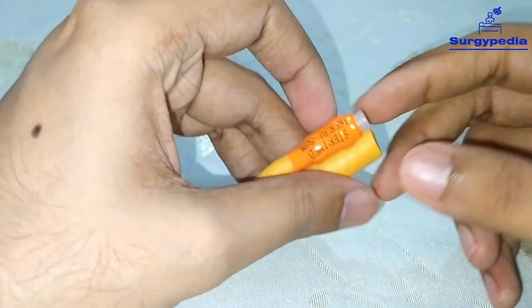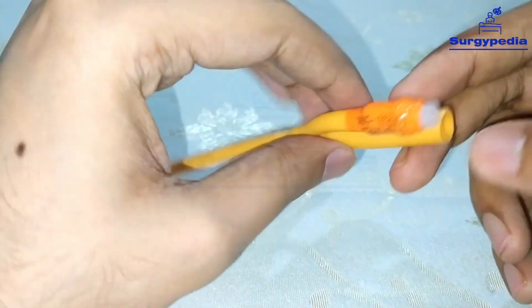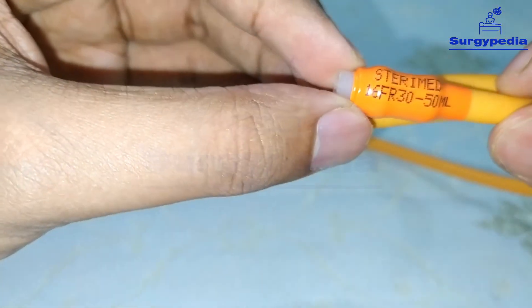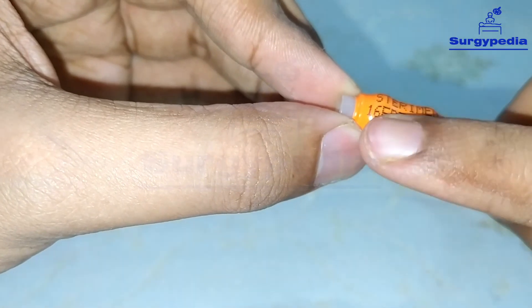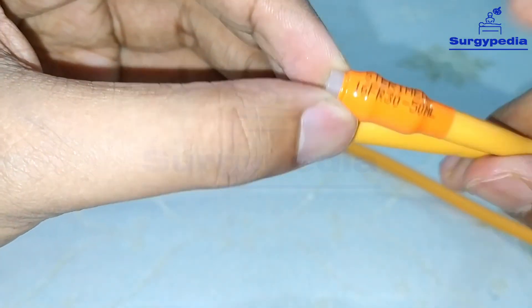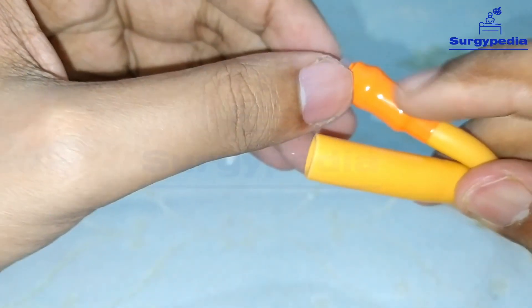So this is all about Foley's catheter. Let's have a closer look once more: this is 16 French, 30 to 50 ml balloon capacity, and the color coding is orange.